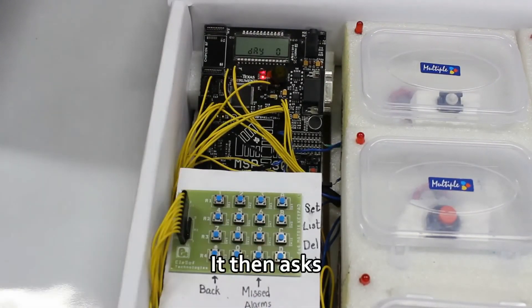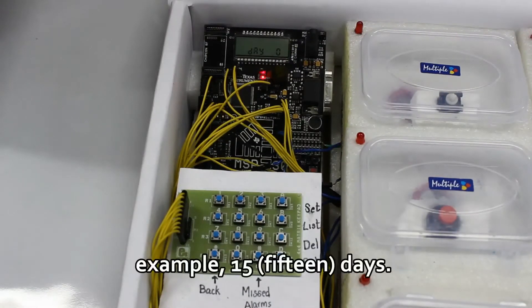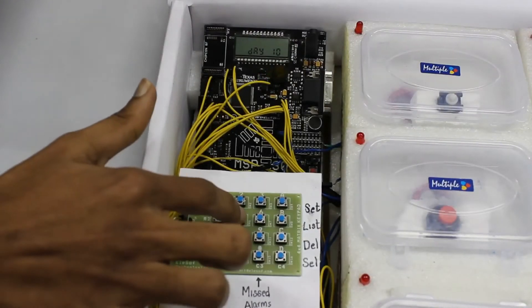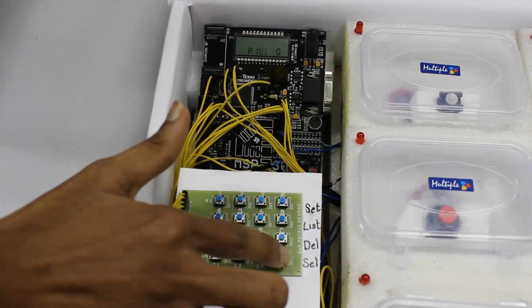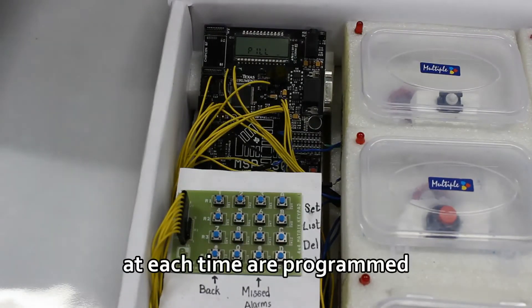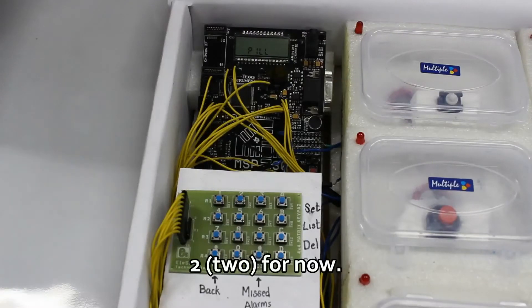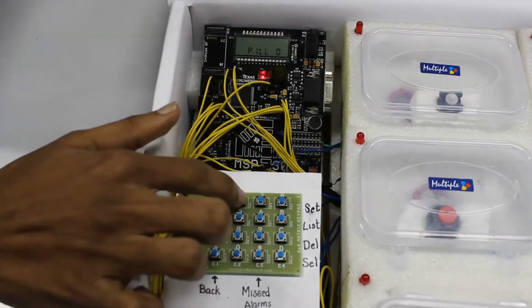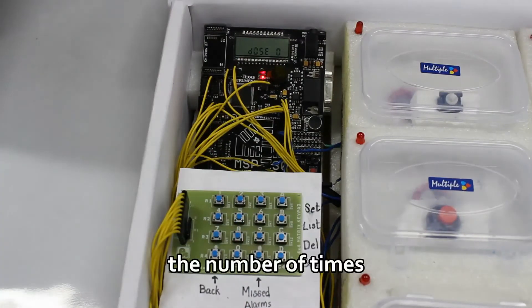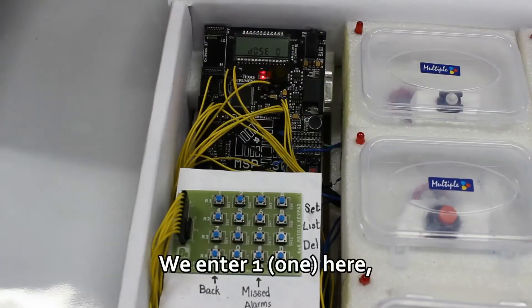It then asks for the number of days for which the user wants a notification, for example 15 days. The number of pills to be taken at each time is programmed when asked for pills, which we set to 2. We now enter the number of times the dosages have to be taken in one day. We enter 1 here, but this can be more than 1.